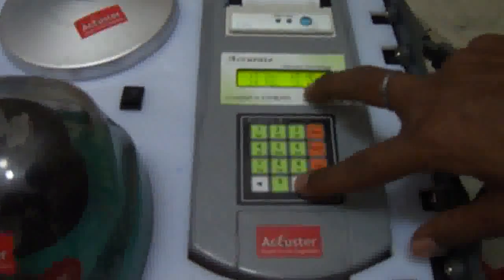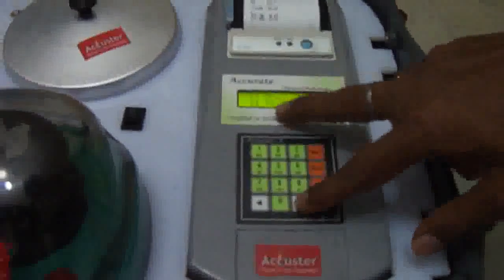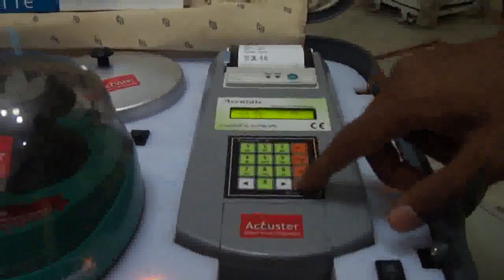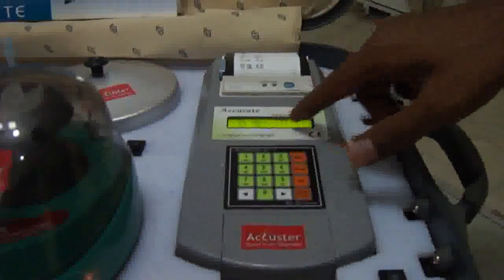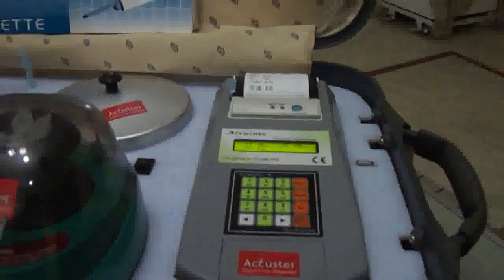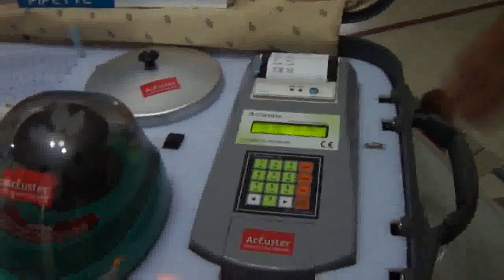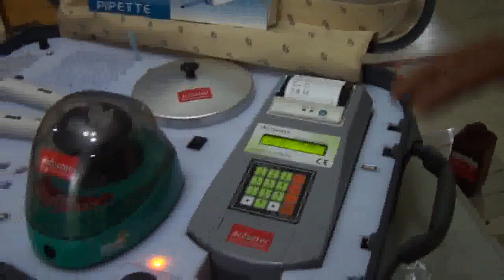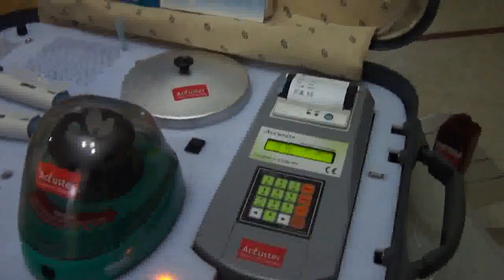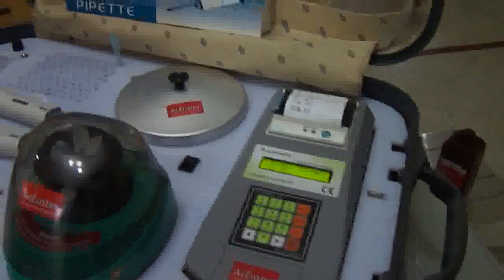Additional tests include cholesterol, HDL cholesterol, LDL cholesterol, triglyceride, alkaline phosphatase, SGPT, SGOT, albumin, direct bilirubin, and total bilirubin. All the tests mentioned on the display are performed in a very short time — within 3 seconds.